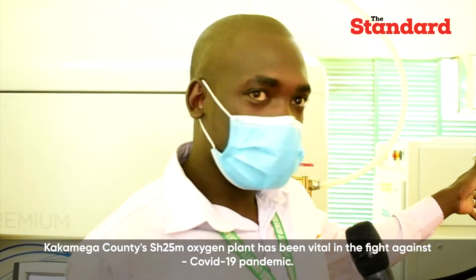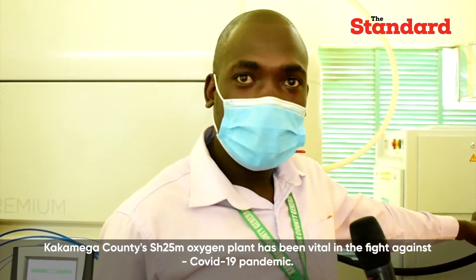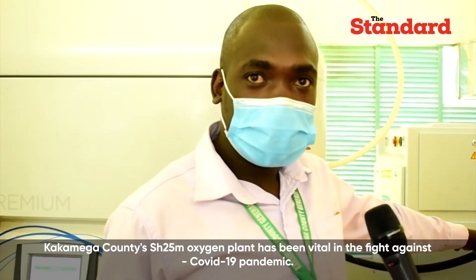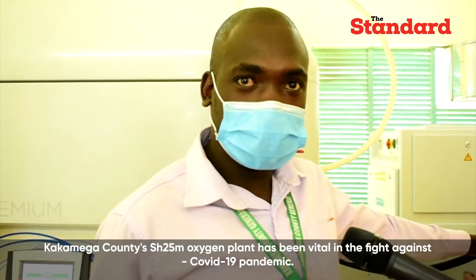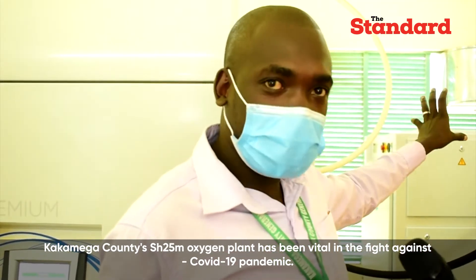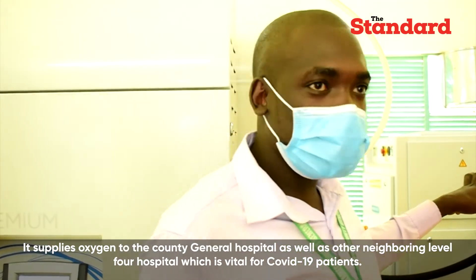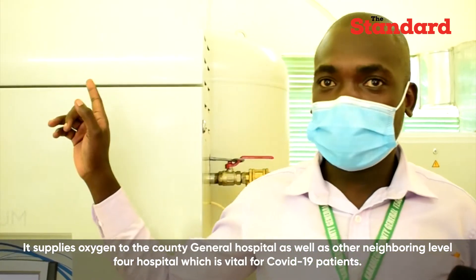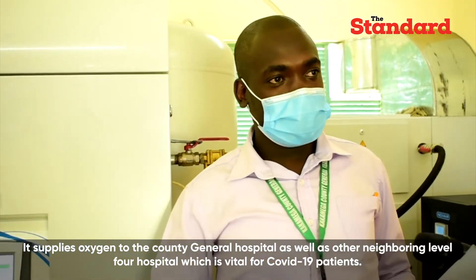Right from this point, power is coming in through a voltage regulator to stabilize power — that is in case of power fluctuations. From this point the first unit of the machine is called a compressor, where air from outside is captured and stored in the first main tank, called the air storage tank.